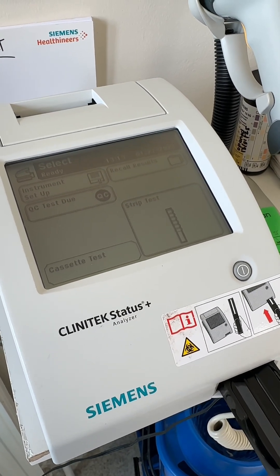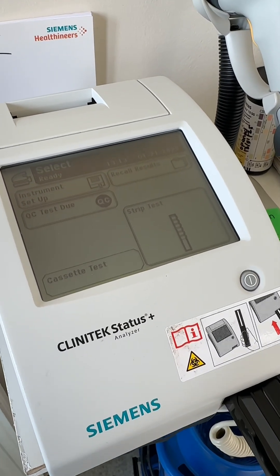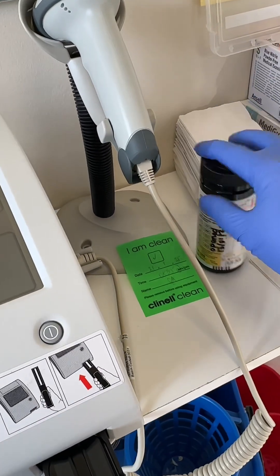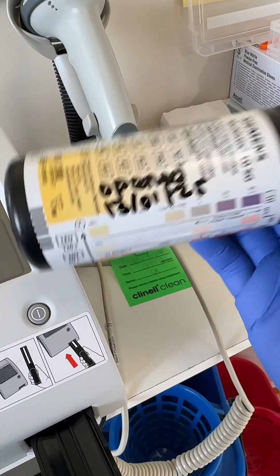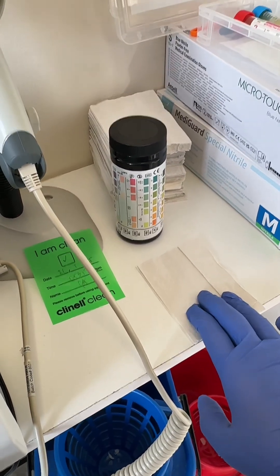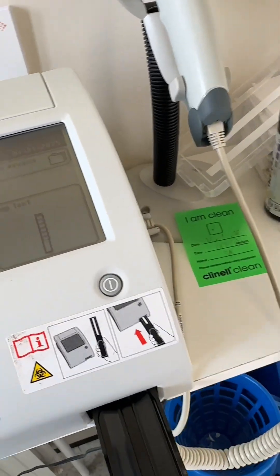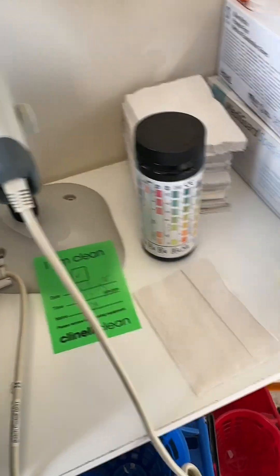First I want to show you how to do the strip test. You've washed your hands, so now put your gloves on. As you can see I've got both gloves on. You have your machine and your test strip. Once you've opened the strip container, make sure you note the expiration date — six months. You have the absorbent paper to blot your test. Set up your area first with your paper, test strip, and urine sample.